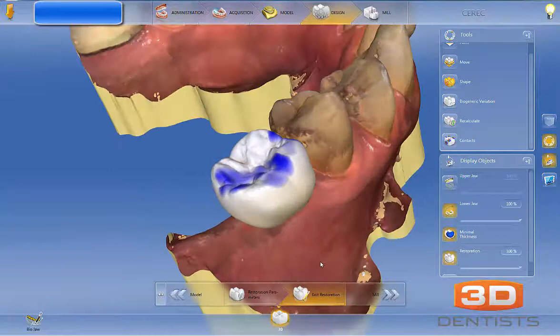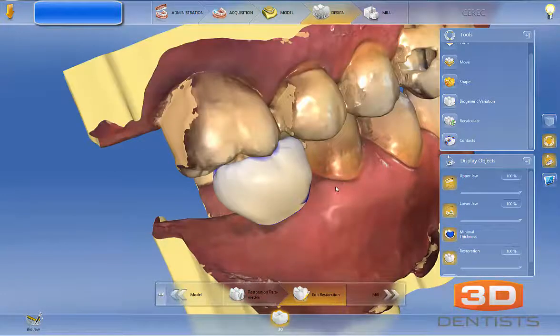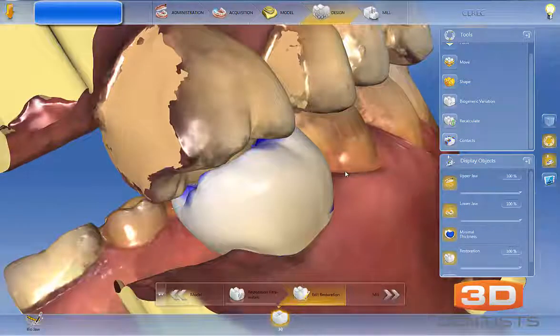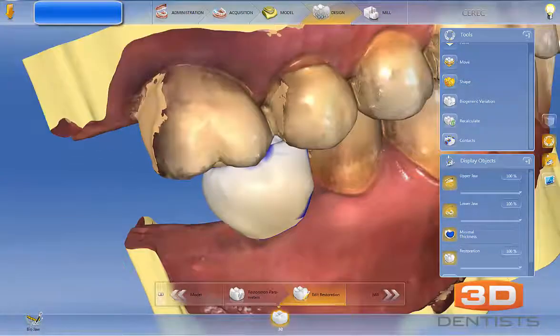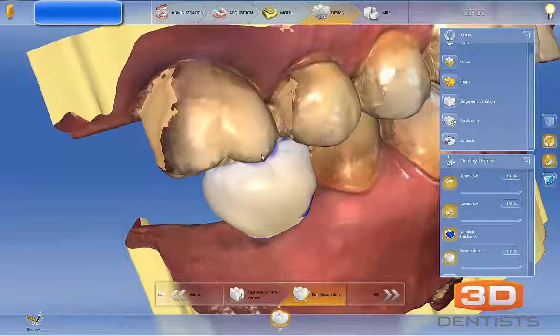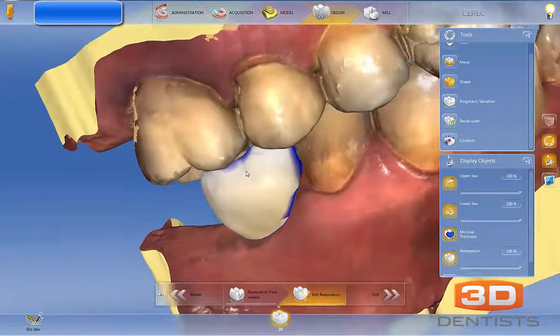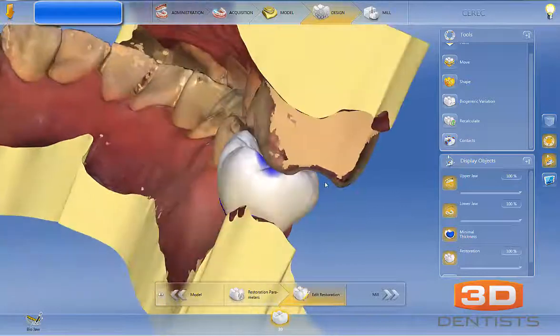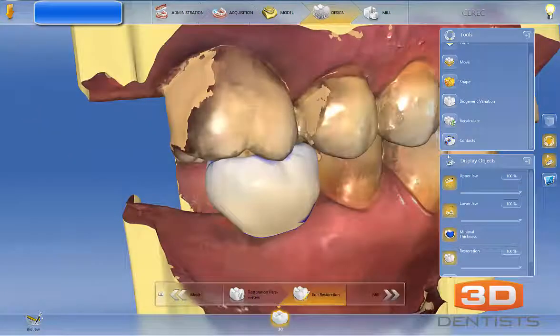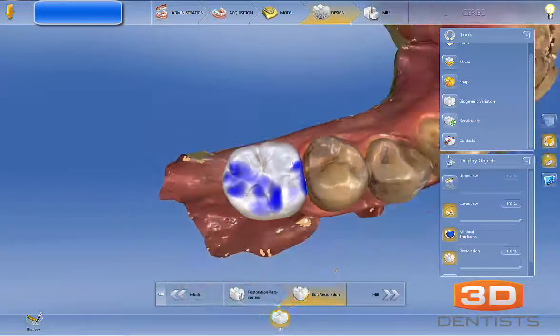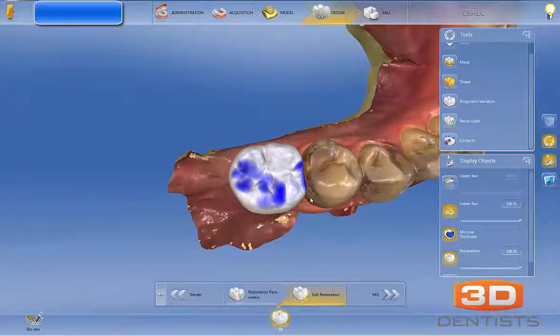One thing that is missing here that I would like to see is articulation — I would like to see how this buccal cusp affects our articulation movements. I'm just a little bit particular about having our design in the right spot. The last comment is having the correct width of the tooth.